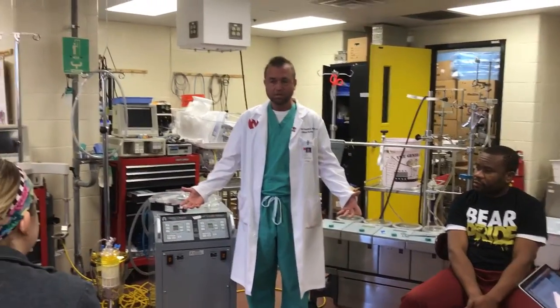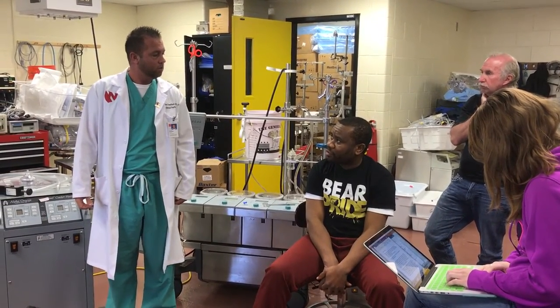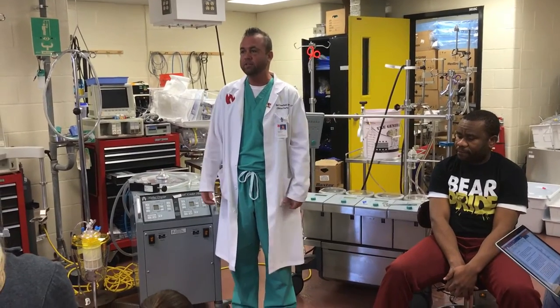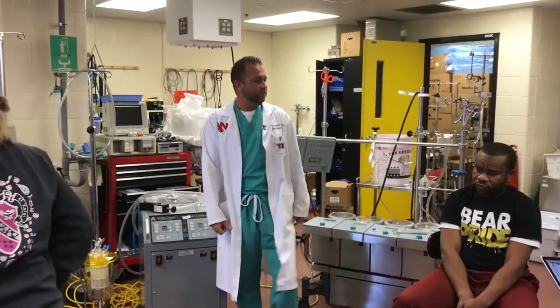When you start building a relationship with a surgeon, they'll make commands and expect you to read or parrot them back. Things like running the hemoconcentrator when you see the reservoir level rising aren't surgeon commands — that's for you to know. In this practice session, I'll instruct you to open the hemoconcentrator so I can observe how you handle it. That's why we're doing this practice today.